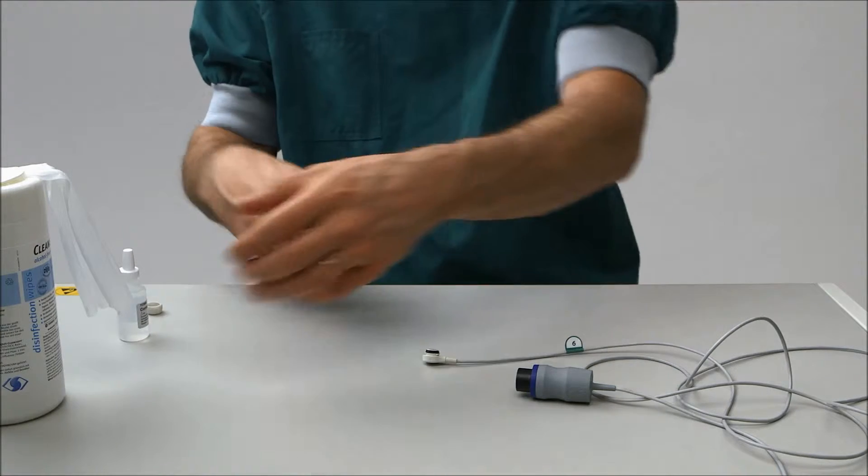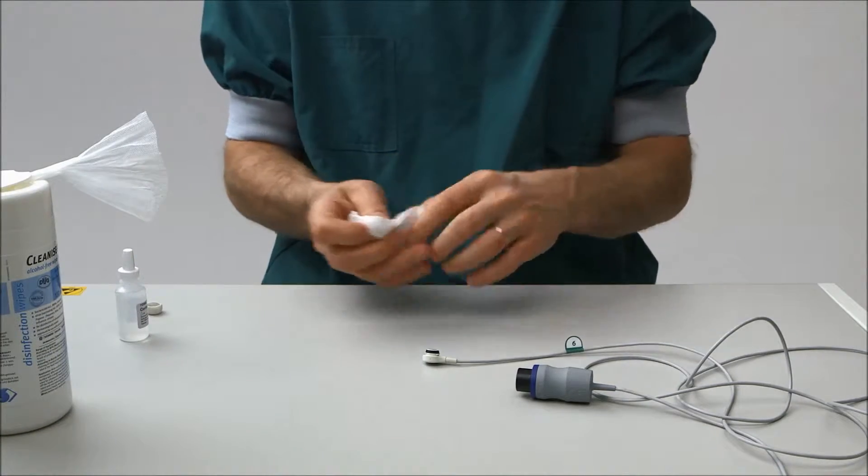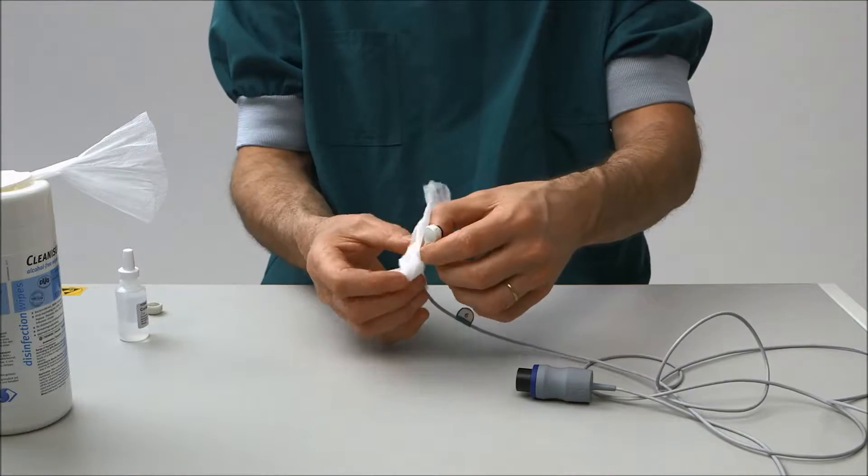Now let's go through some basic maintenance and cleaning. Clean electrodes with a moist cloth, then move on to proper disinfection procedures.